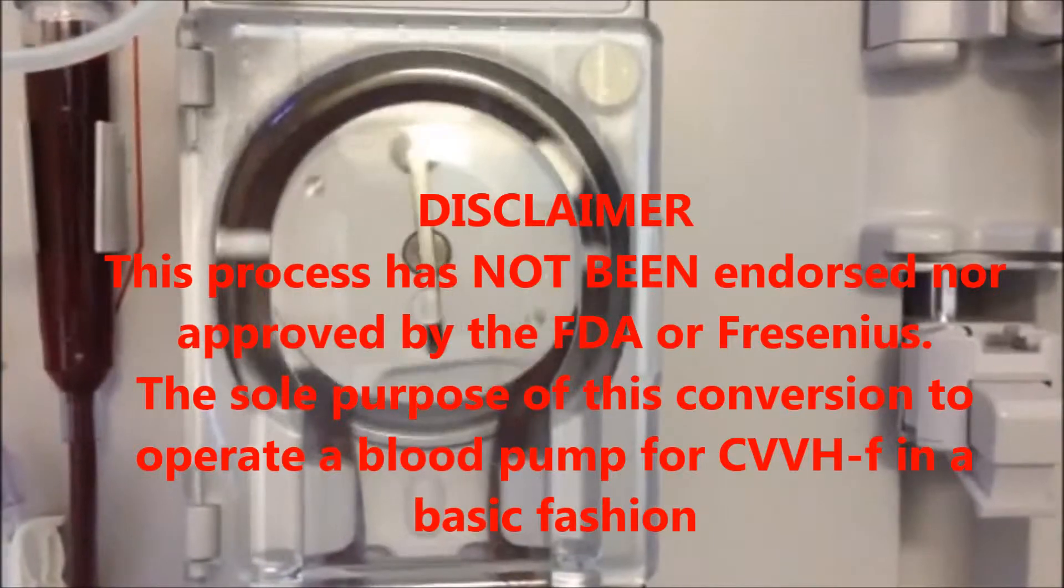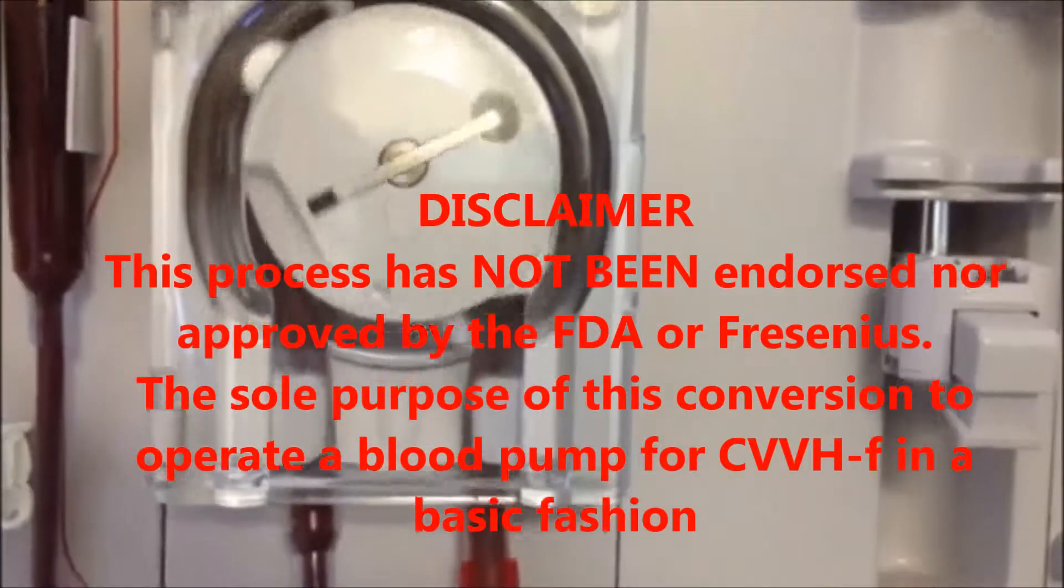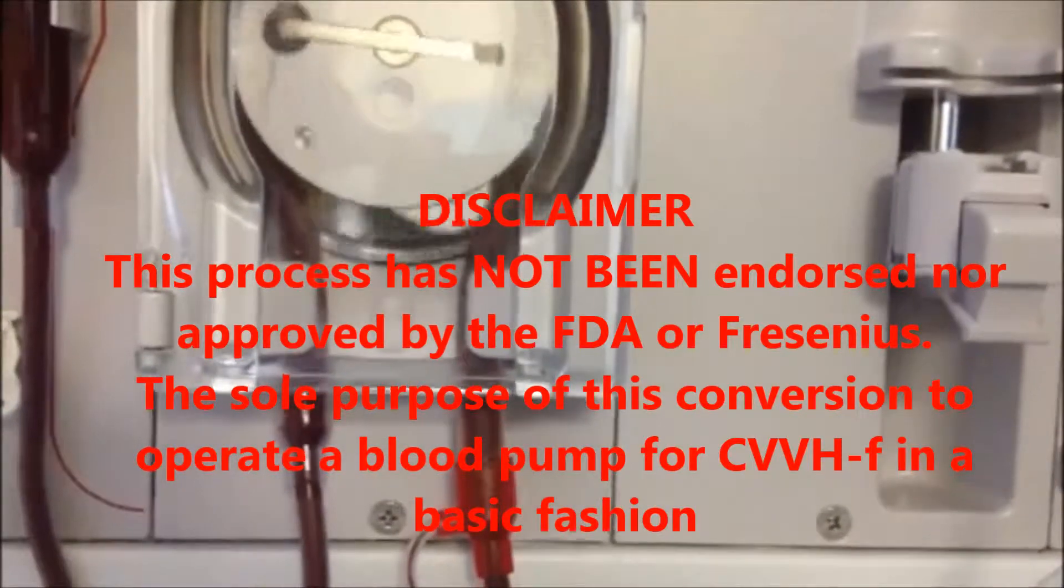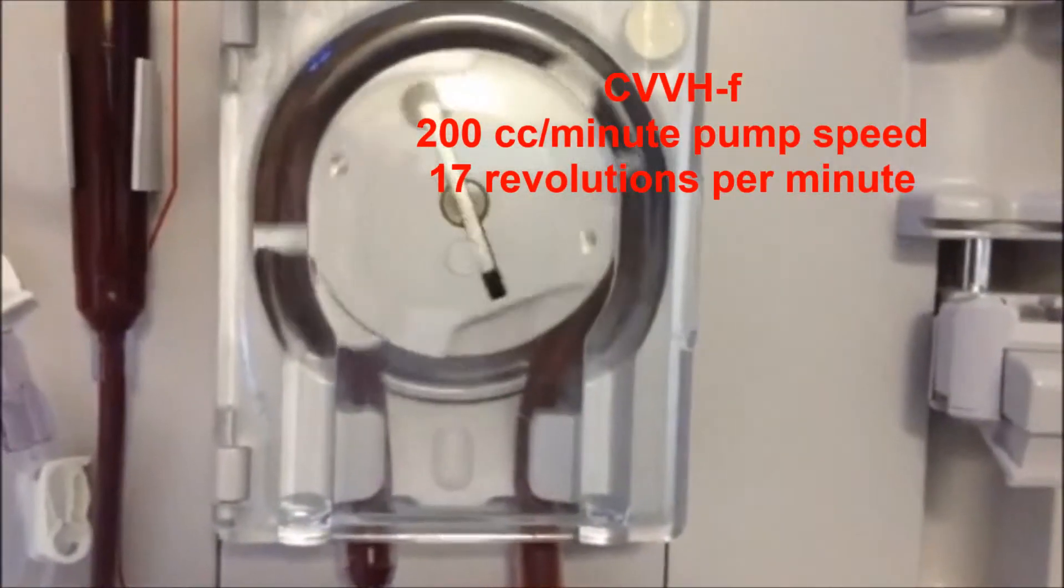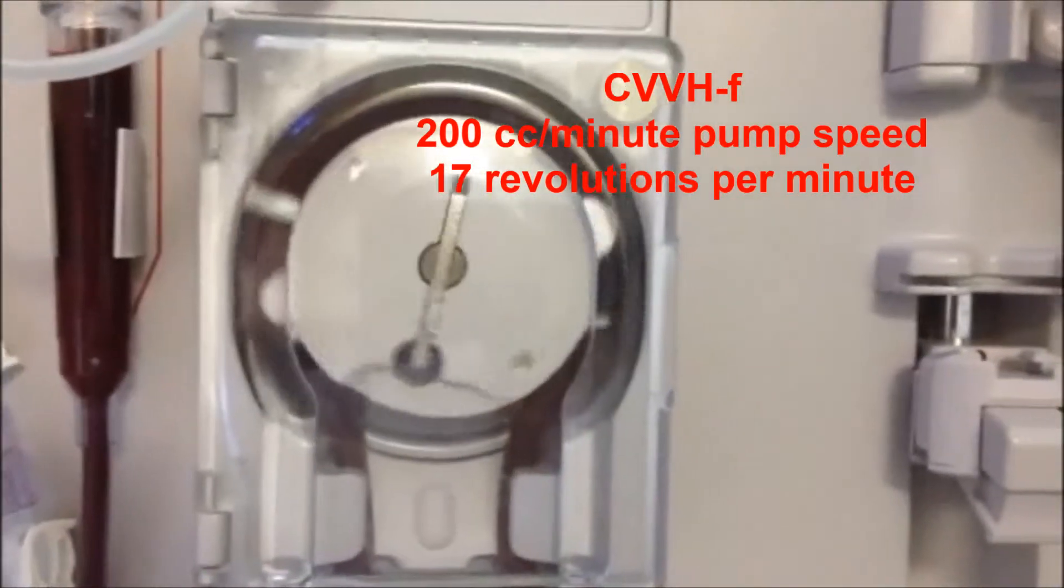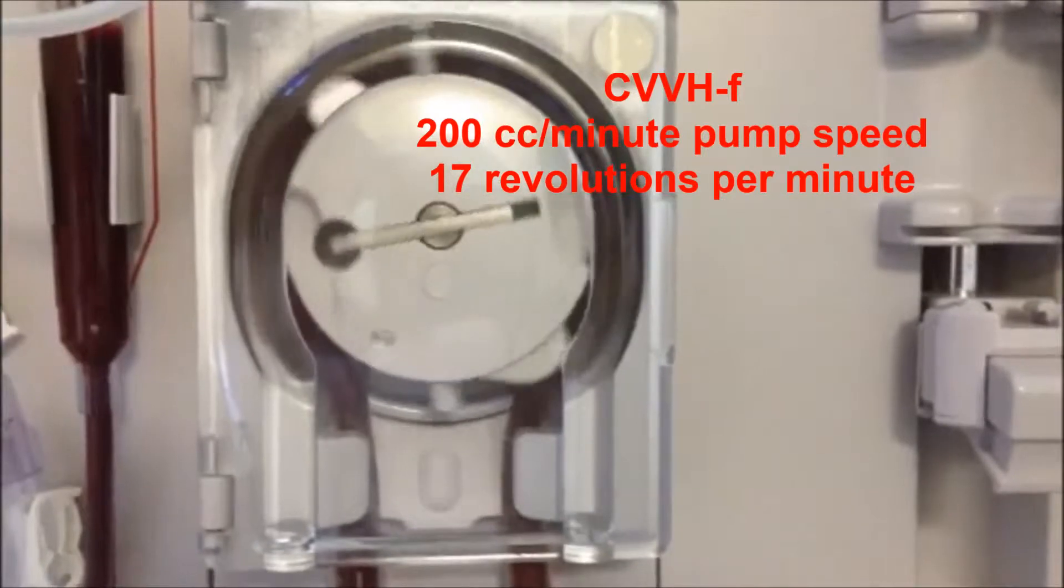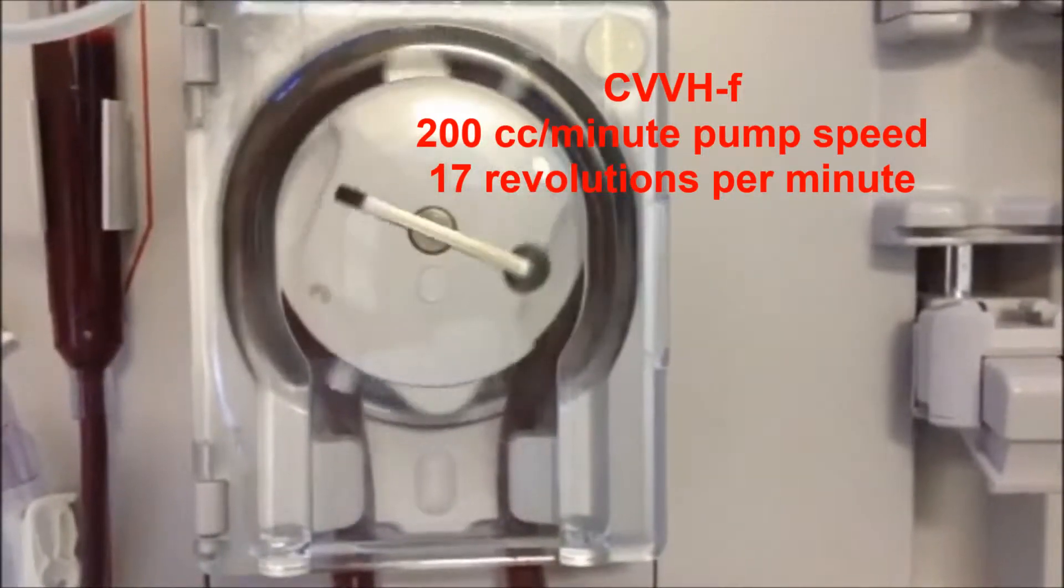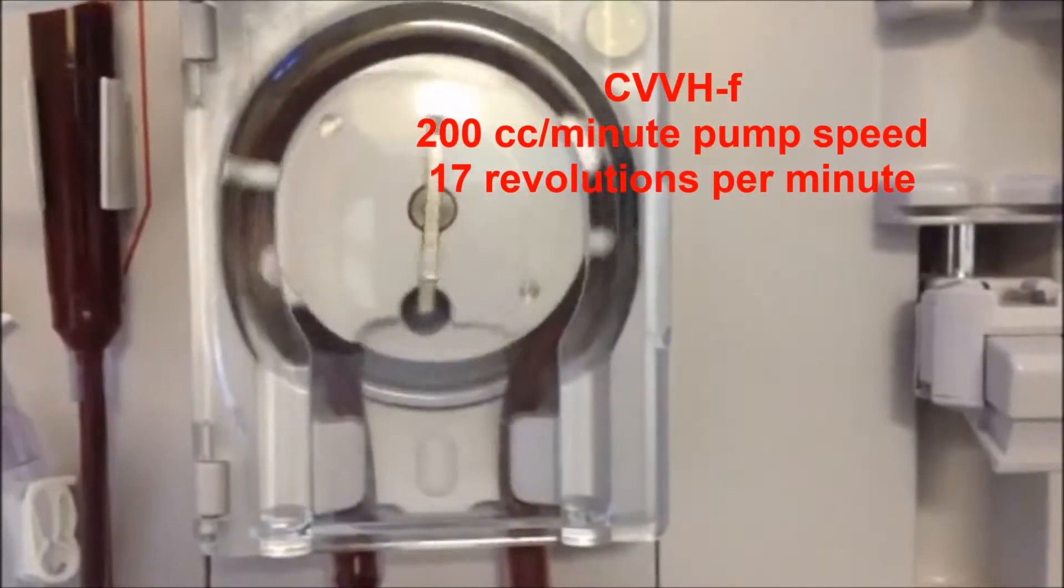This is actually the blood pump in action with blood tubing going on both ends. What is interesting is the fact that it's running exactly at 200 cc's a minute, which gives it about 17 revolutions per minute.